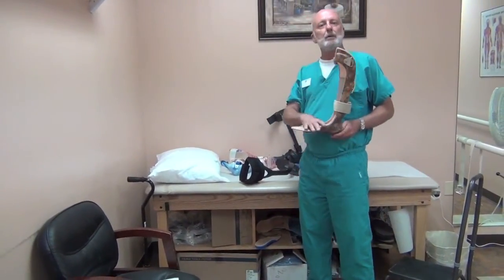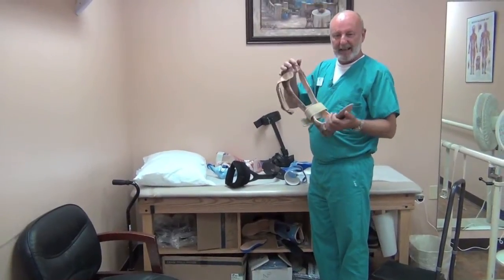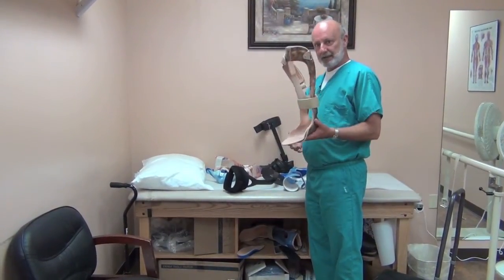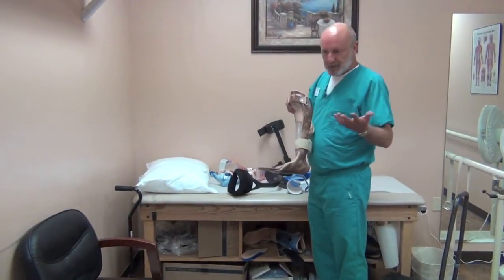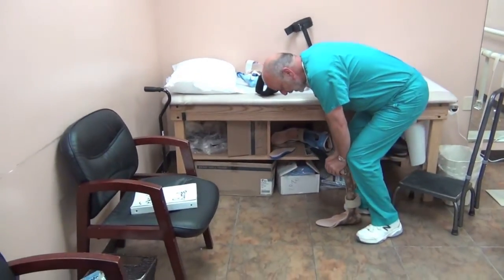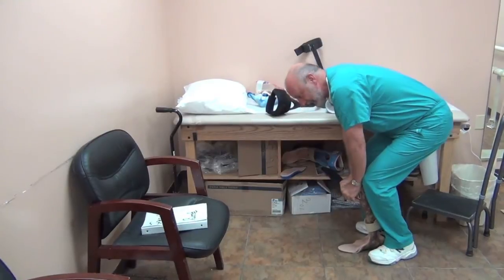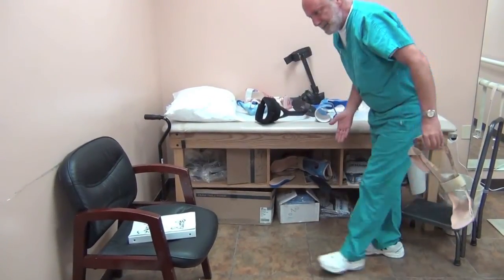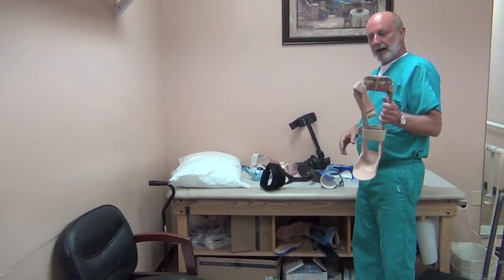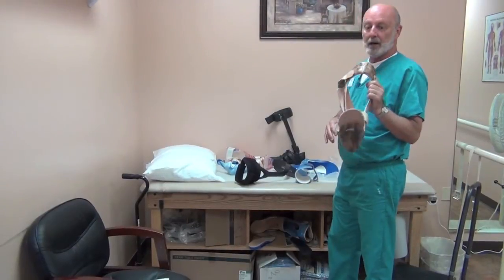So for anyone with weak plantar flexors, you need a rigid system that is going to block dorsiflexion. This is a Texas Turbo design — any really solid ankle design is effective, but I do like the anterior shell that really locks in the ankle. This is the most effective treatment I know of for weak plantar flexors. It's made from polypropylene, and what it does is when the foot is loaded, the plastic is very strong but flexes just a little bit, and then as weight transitions off it kicks the foot forward and helps with limb advancement. So if you have weak plantar flexors along with weak dorsiflexors, I would definitely recommend this solid design — the Texas Turbo floor reaction, low-profile, wide-open floor reaction AFO design. It works incredibly well.